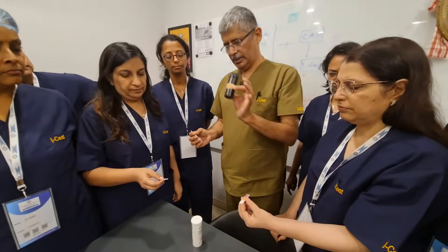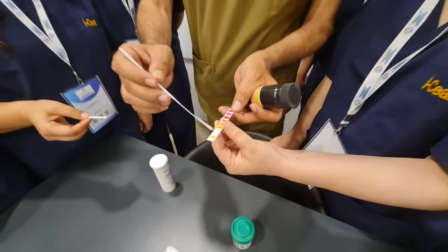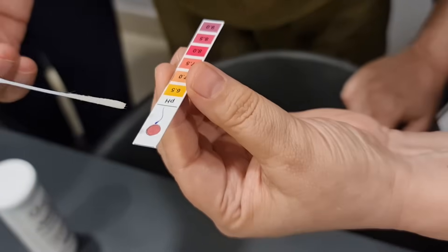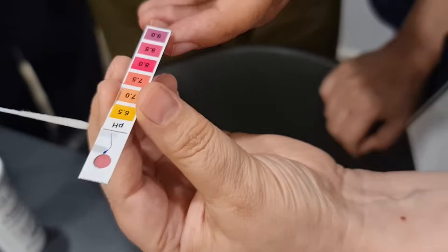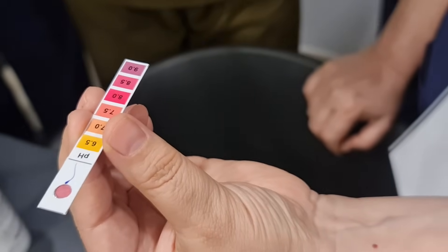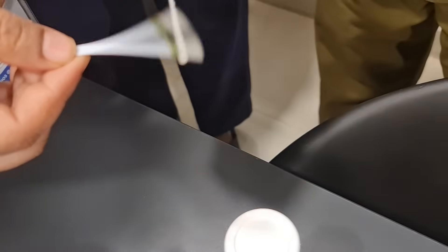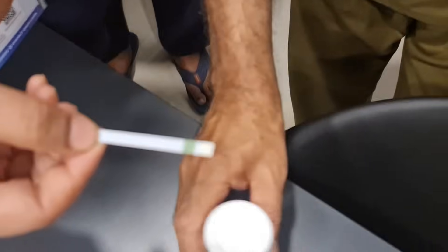Taking a sample to look at the pH and leucocytes. This is a simple pH paper — putting one drop here and seeing what happens. We compare the color with the reference chart. The color is coming around 8 to 8.5. There are many ways of checking the pH, including putting the sample on the pH paper like this.